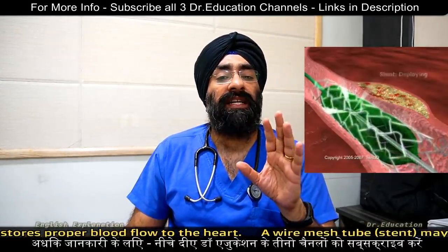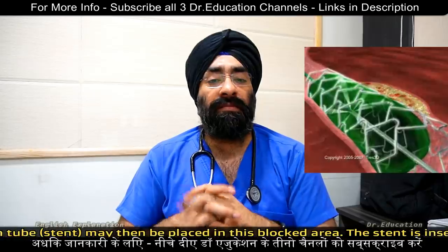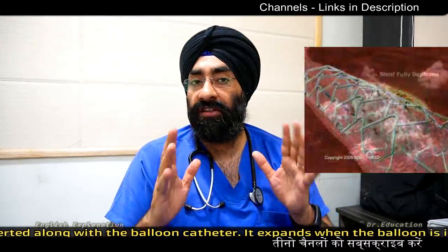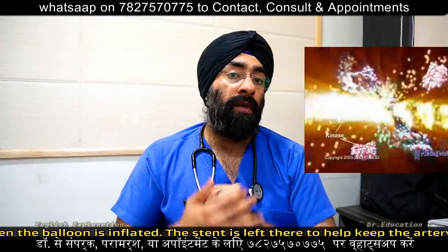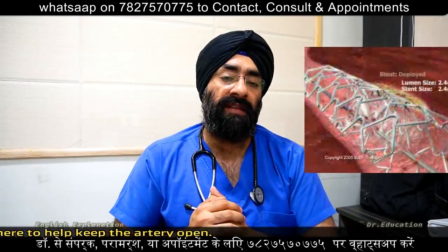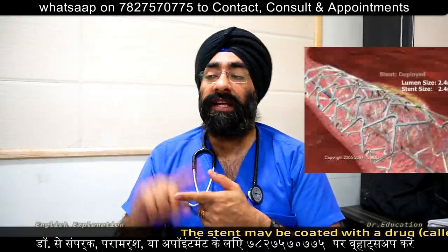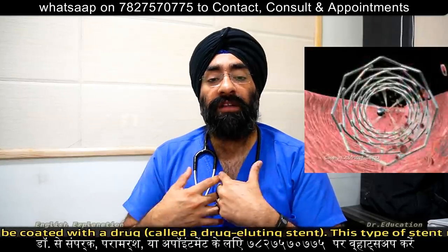Drug-eluting stents are mostly used worldwide. These stents have more chance of staying open without re-blockage. Because the stent is a foreign object, dual anti-platelet or blood-thinning medication must be taken compulsorily for 1 to 6 months.